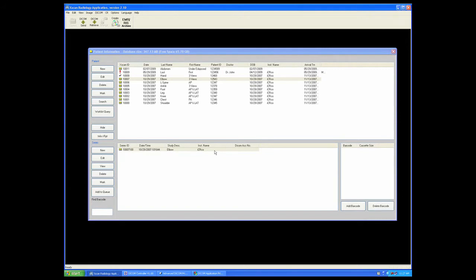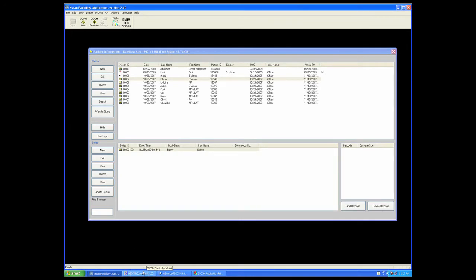Now let's talk about DICOM targets and the DICOM send functions. Here on the taskbar, located at the bottom of your screen, once it has been enabled, your DICOM controller will be running.